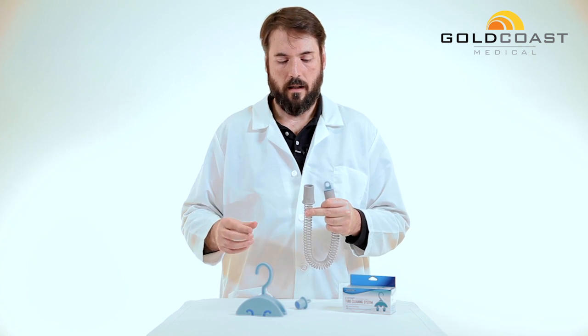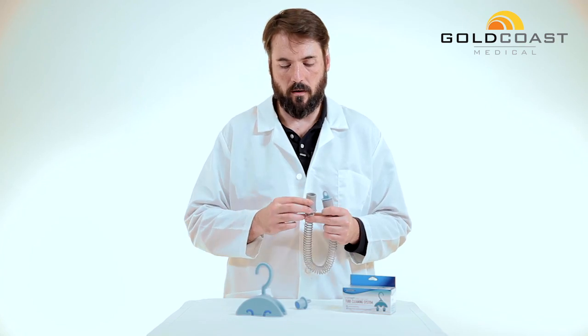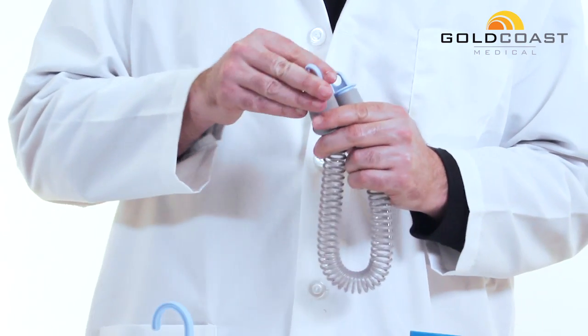And then for the hose itself, we have two caps that are included. Put one on one side, then pour your favorite CPAP hose cleaning agent into your hose. Cap it off to keep it in there.